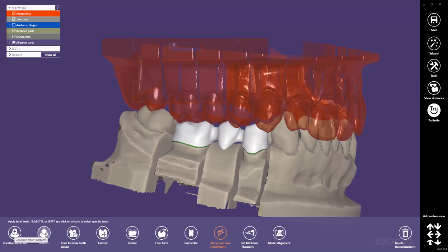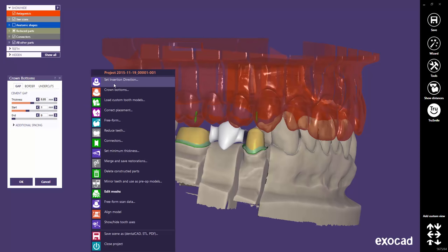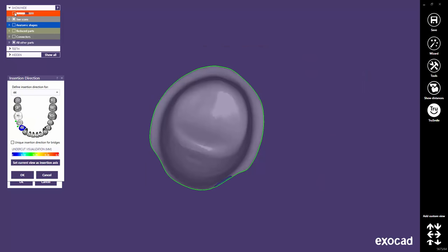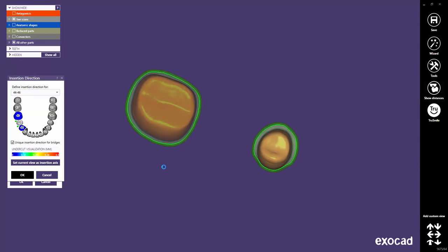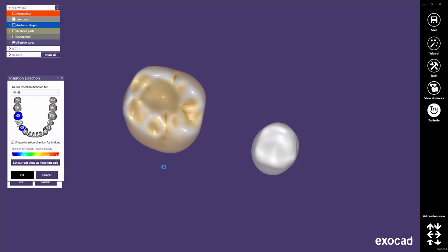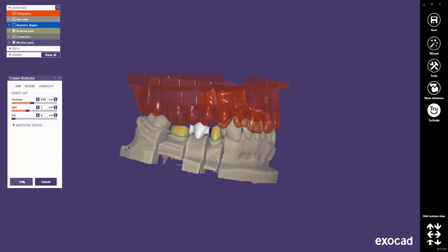We go to the Bottom step to increase, for example, the cement gap, and to change the insertion direction. The insertion direction step can be chosen in the right mouse context menu. Let's try to define a unique insertion direction. Apply the insertion direction axis and click OK to close this window. The new insertion will now be computed for your existing restoration. Now click on the OK button in the Crown Bottoms window to apply the cement gap settings.